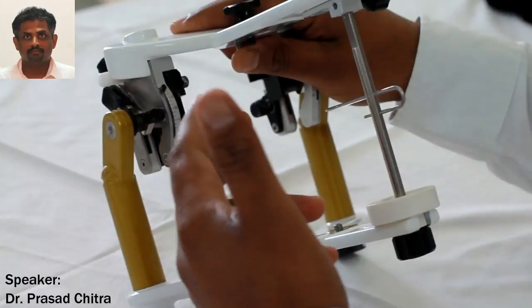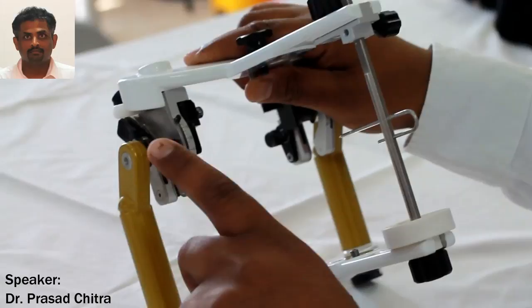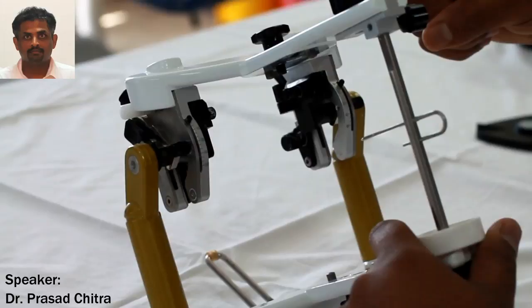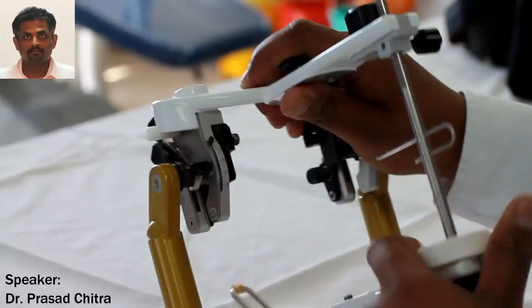This is unlike the case when you use a hinge articulator or a mean value articulator, because the quantum of vertical opening is not clearly determined, and the maxillary model is not related to the facial planes or the facial skeleton. So the arc of closure in those articulators is arbitrary and will lead to a lot of error when the vertical dimensions are changed.